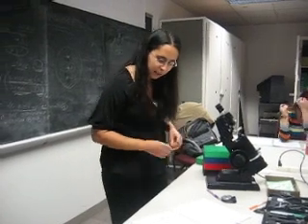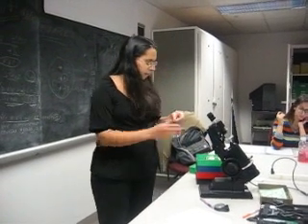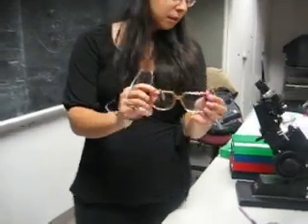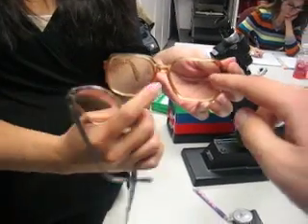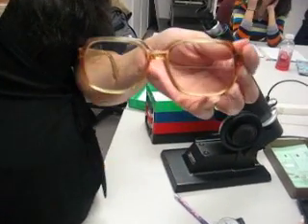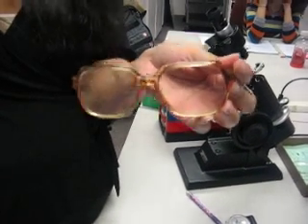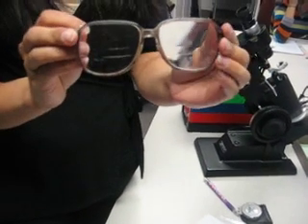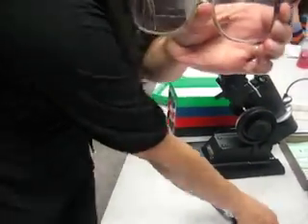So then to determine the size of the trifocal, if it's this, you want to take a look. Can you see the marks still on you? Okay, so if you see it like this, this is an executive trifocal. There is nothing else to write with that. It will most likely be something of this nature, where it doesn't go all the way across.